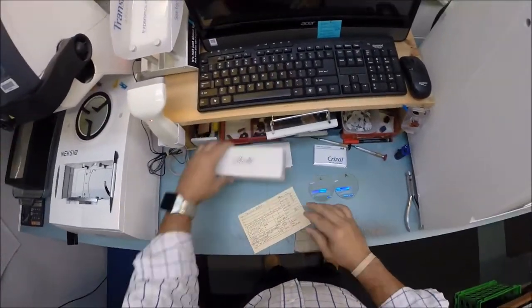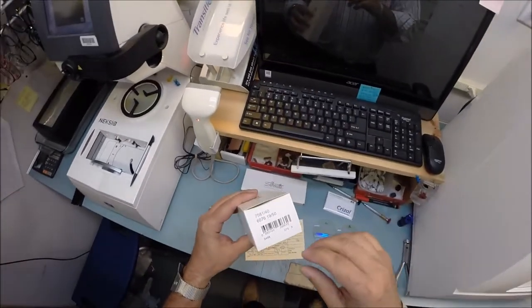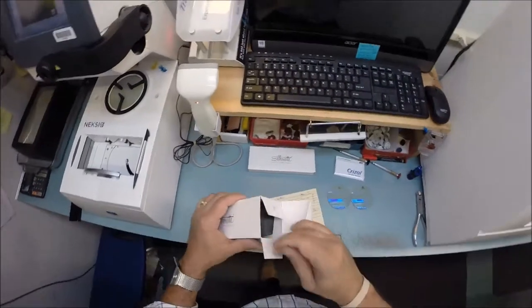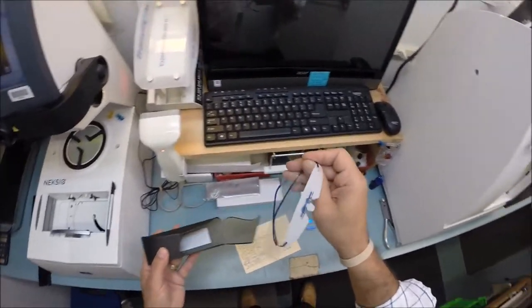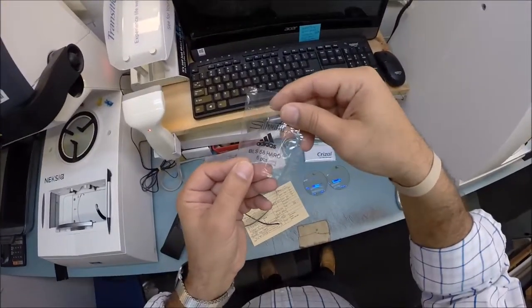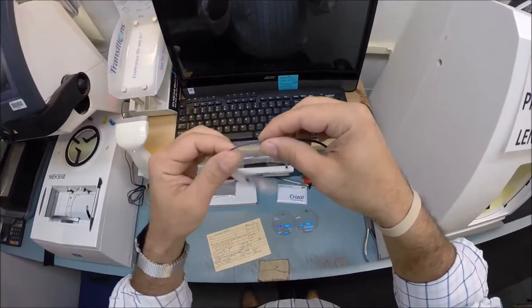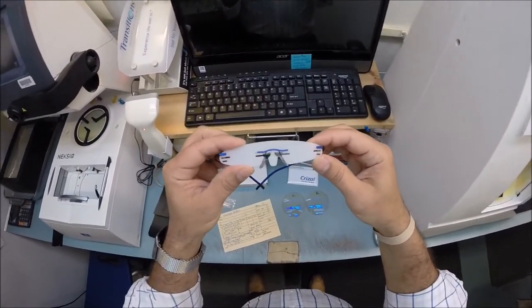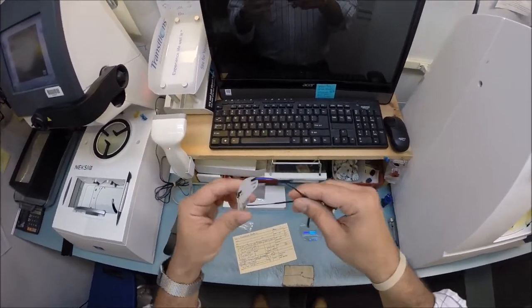I'm going to cut drill mount lenses for my Silhouette Series 7581. I'm going to be cutting shape 5397, but the color I'm choosing for the chassis — the three pieces I call the chassis — is 6076, which is a blue color. Of course my Silhouette cleaning cloth and my frame. Inside the case comes with what they call the hard sleeves, which I don't use. I prefer the soft sleeves but this is my frame. It comes with a little plastic sleeve on the temple to protect the temples from rubbing together during shipping. It does not come with any lenses in it — I can cut any shape to go in these — but I'm going to show you which shape I have pulled up. This is the dark blue.